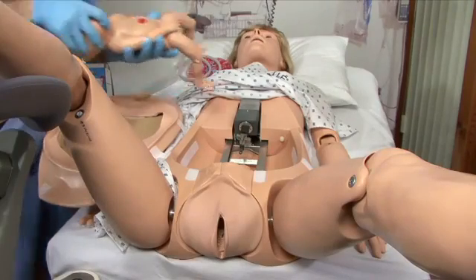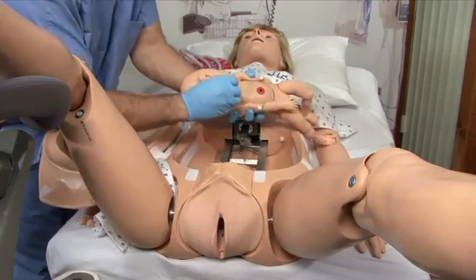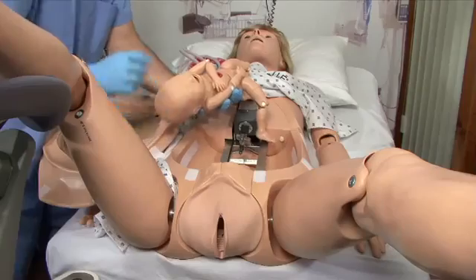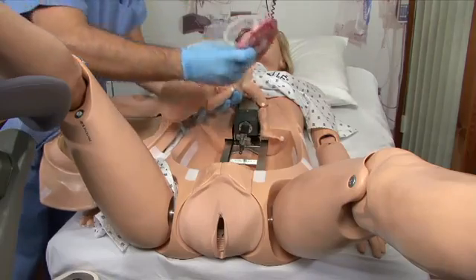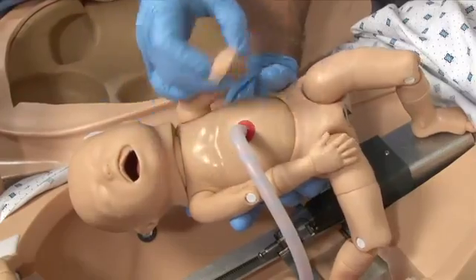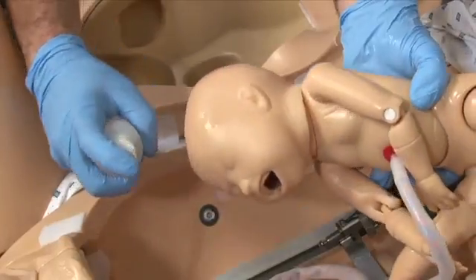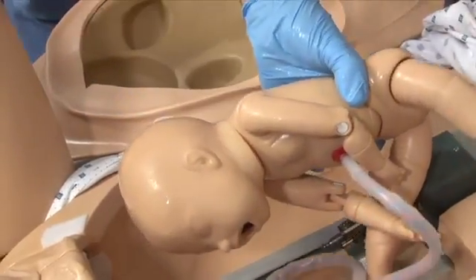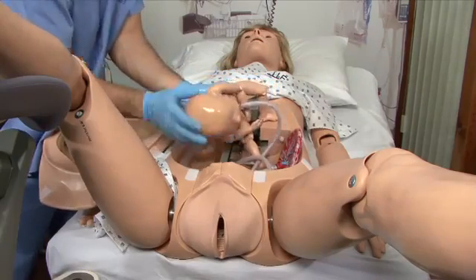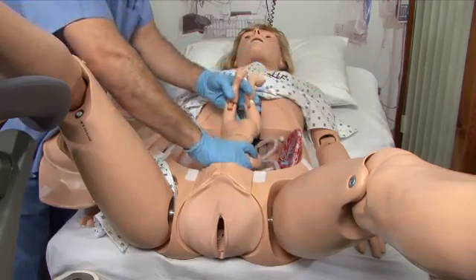To prepare the fetus for delivery, first install the soft head cover to ensure a tight vacuum seal when an extractor device is used. Connect the umbilical cord and placenta, then lubricate the head and shoulders. Fasten the placenta to the Velcro adhesive located on the uterus wall. Remember to always reapply lubrication prior to every delivery exercise.